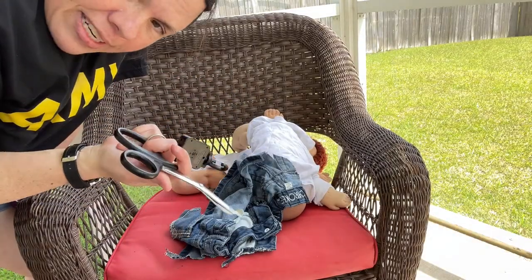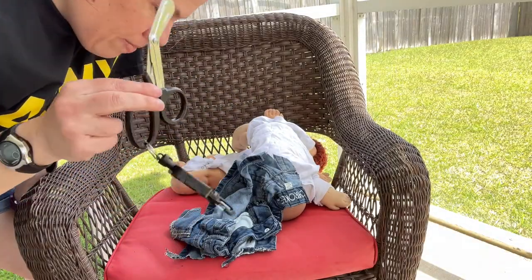Already my hand is tired and hurting — these things suck. I've actually done this in real life. We had a real trauma patient come in when I was at the National Training Center in California. I went ahead and used my seat belt cutter and got the guy's pants off in a matter of seconds, whereas we had two medics trying really hard to cut the guy's uniform top off and they were not making any progress. I handed them my seat belt cutter and they were able to have it off within two seconds.